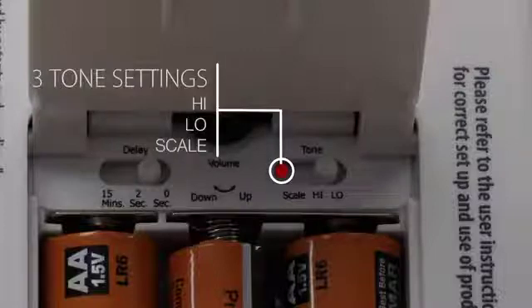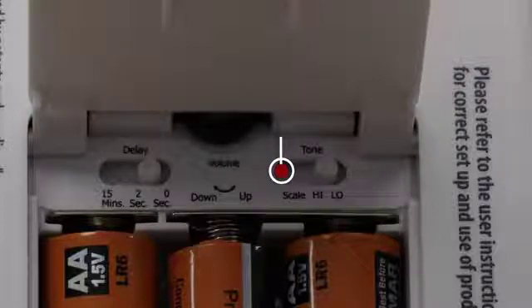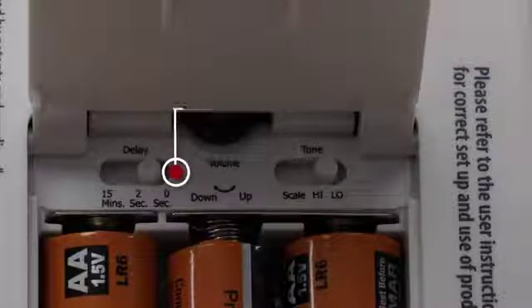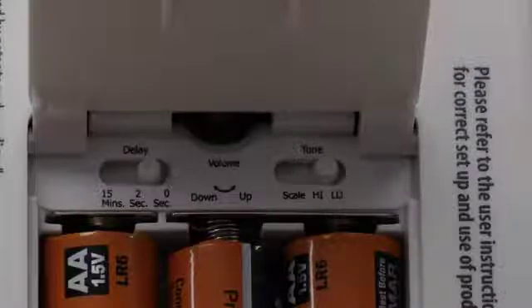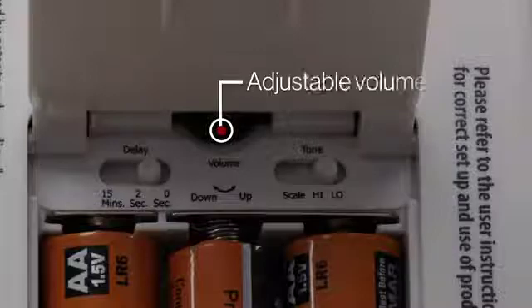Three tone settings: high, low, and scale. Three delay settings: 0, 2 seconds, and 15 minutes. Adjustable volume control.